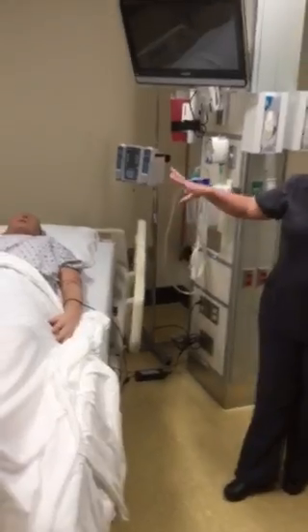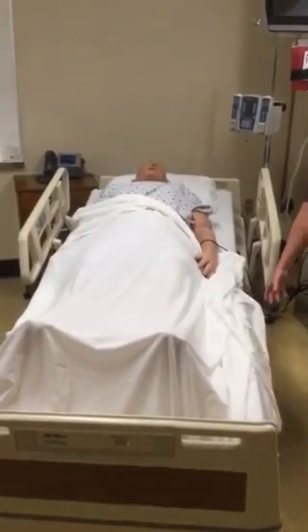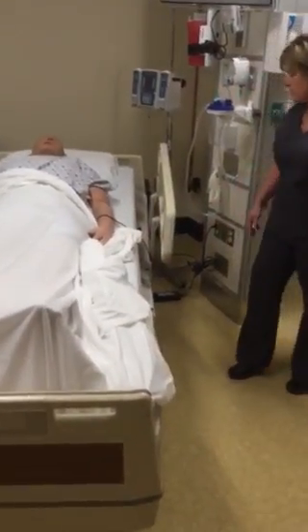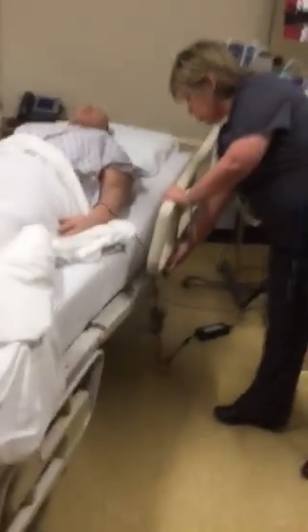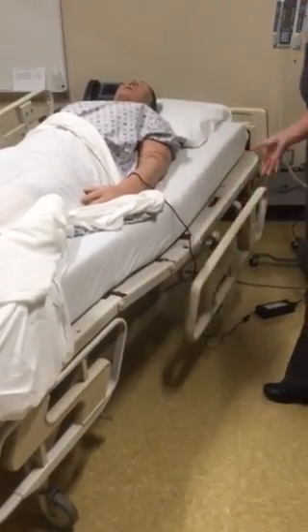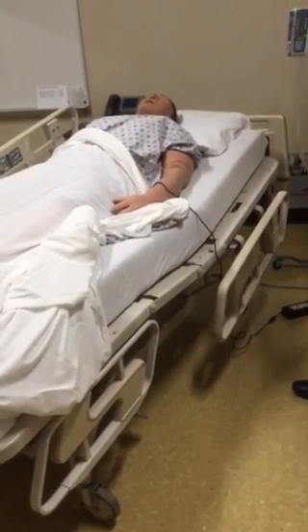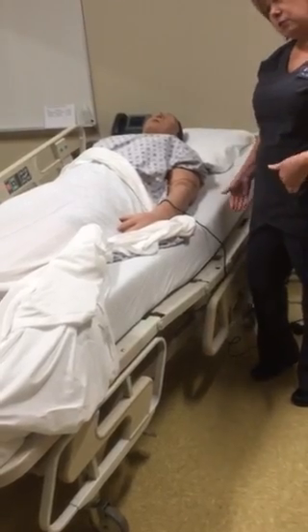You have 4 bed rails. You have lower and upper. For those bed rails, they are on a track that you have a release button, and so you'll want to make sure that it says push on it. It's very easy to find, and then that bed rail will fold away toward the head of the bed or toward the foot of the bed.